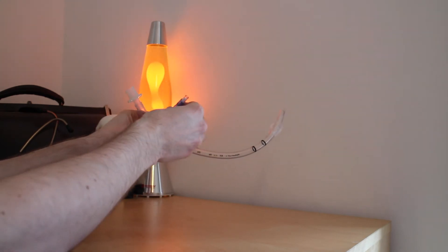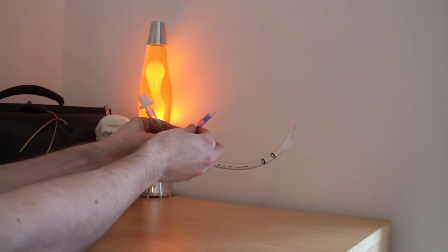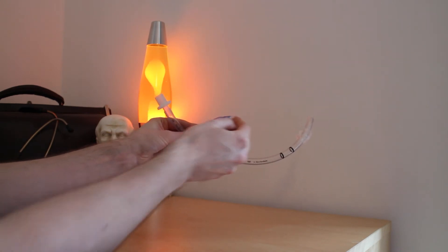The cuff can be inflated by pushing around 10 milliliters of air via a syringe into this port.